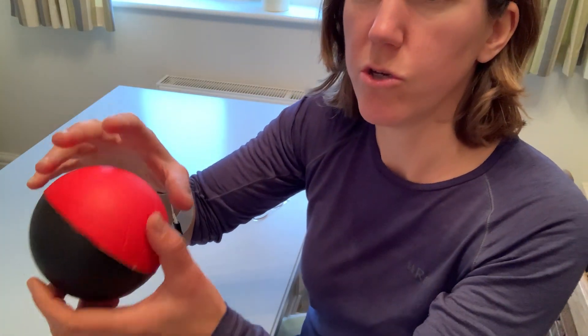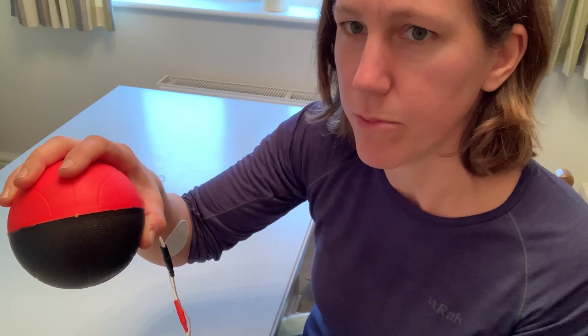You could use — I've got a ball here — so it's going to squeeze my hand around the ball, so it gives my brain a bit of a visual prompt. And again I want to be thinking about trying to work with the device, so as soon as I feel the tingling I'm actively trying to close my hand with the ball.